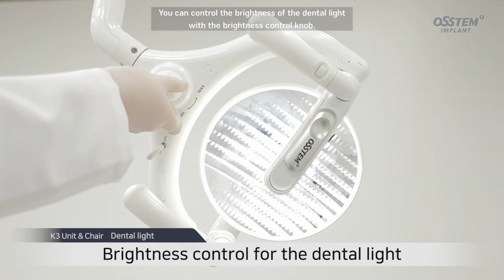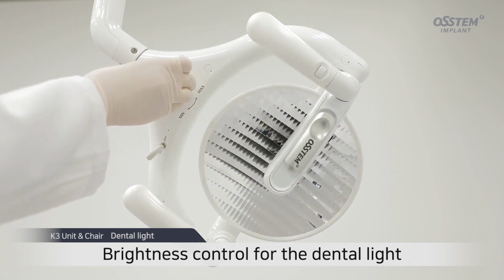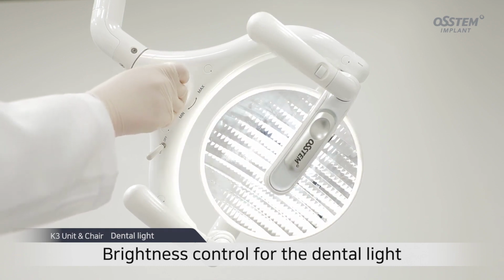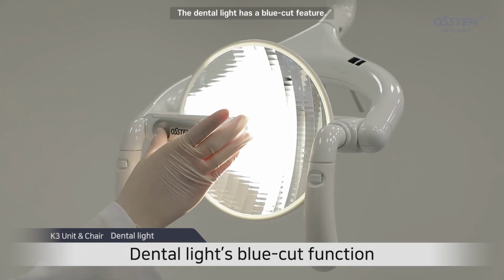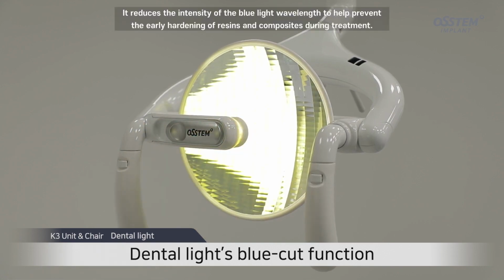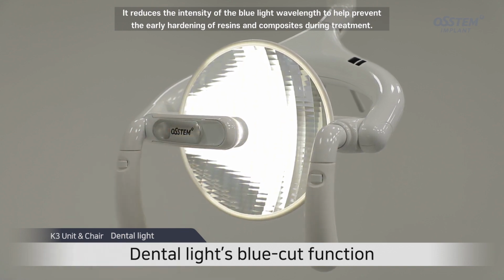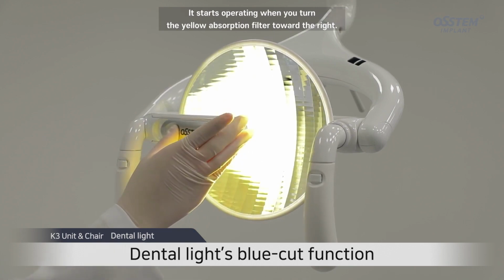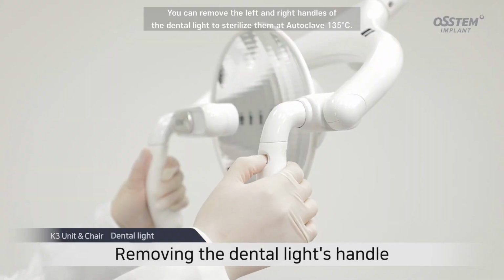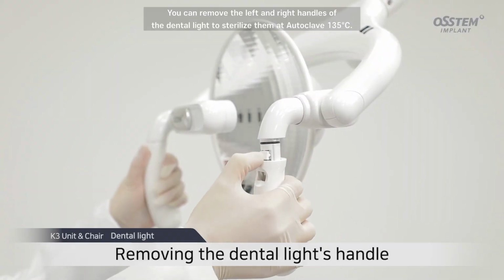You can control the brightness of the dental light with the brightness control knob. Turn toward max for the maximum brightness. The dental light has a blue cut feature. It reduces the intensity of the blue light wavelength to help prevent the early hardening of resins and composites during treatment. It starts operating when you turn the yellow absorption filter toward the right. You can remove the left and right handles of the dental light to sterilize them in an autoclave at 135 degrees Celsius.